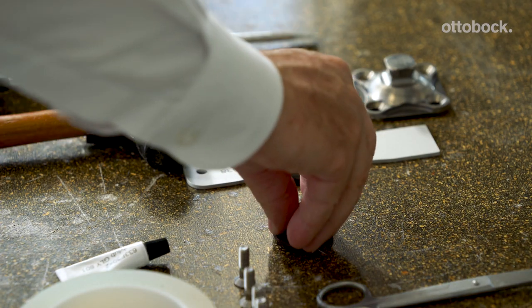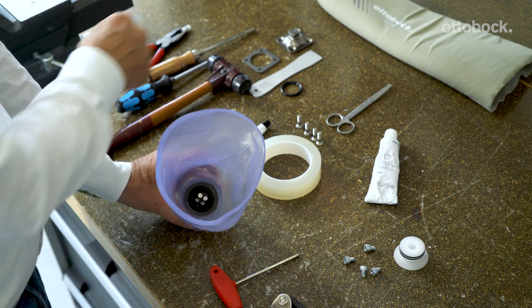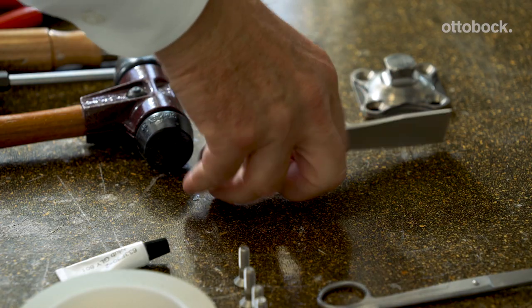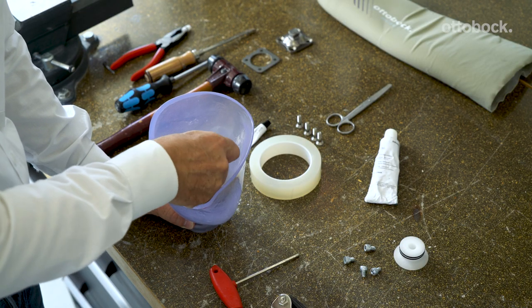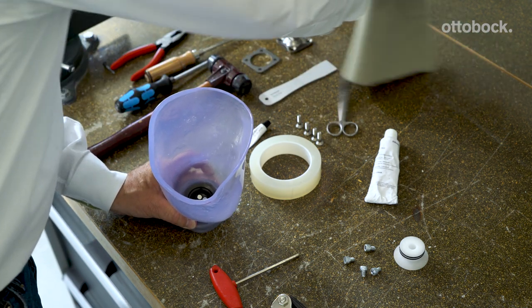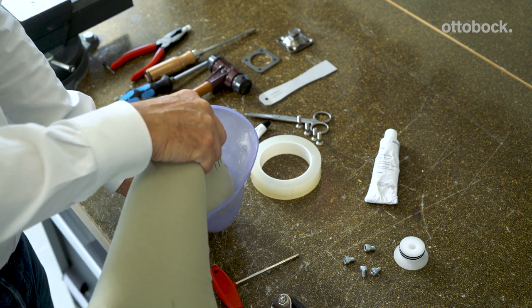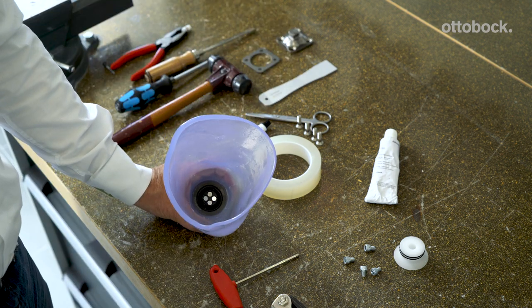To finish the assembly, insert the piston into the housing. Now take the fixation ring and tighten it in the cylinder with the wrench provided. Notice the piston is down. In order to raise the piston to an acceptable place for donning, insert the liner, hear the snap connection to the piston, and pull the liner out — this pulls the piston up.